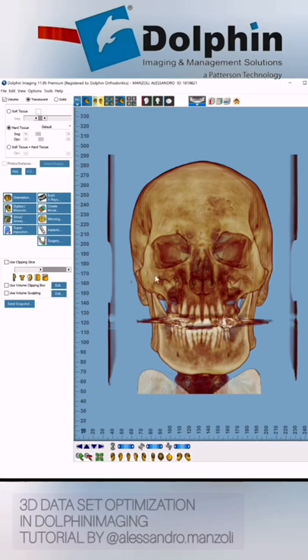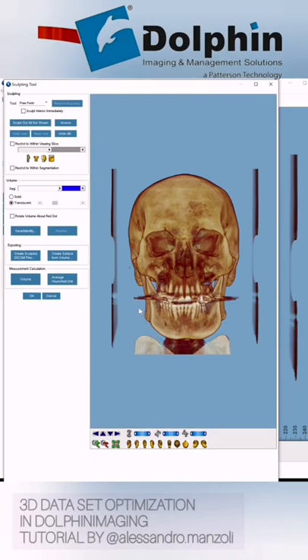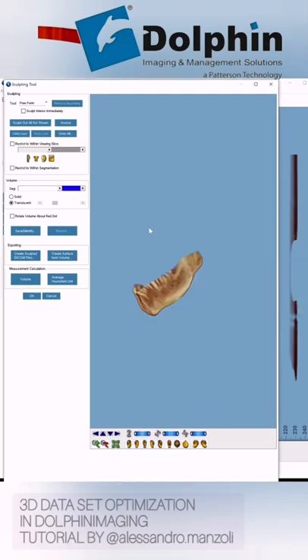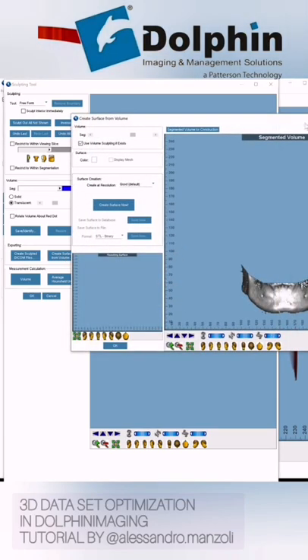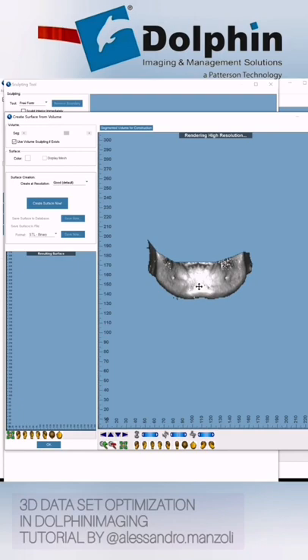The other important thing is about the segmentation of the surfaces that you will do in 3D surgery. To make an example, I will make a segmentation here, but it is the same in 3D surgery. Let's assume I go to sculpt my volume — I use the sculpting tool just to make a surface. Let's take just a little piece of bone structures like this, then cut out everything outside. Now we can go to 'Create Surface from Volume'. This is going to be very similar to the option you have in 3D surgery. Basically the surface creates at resolution — you see here you have Full, Good, and Lower.